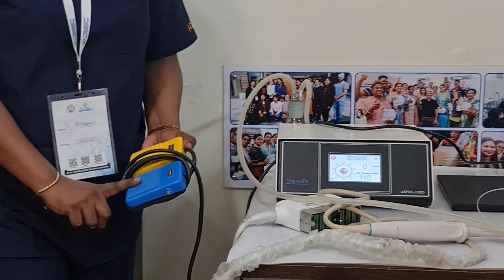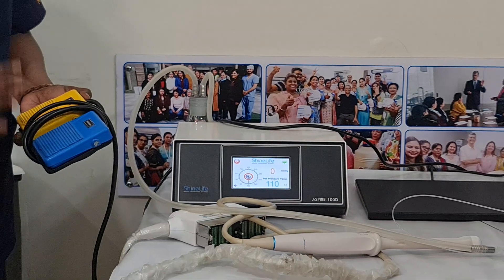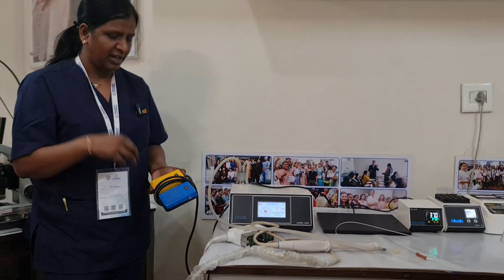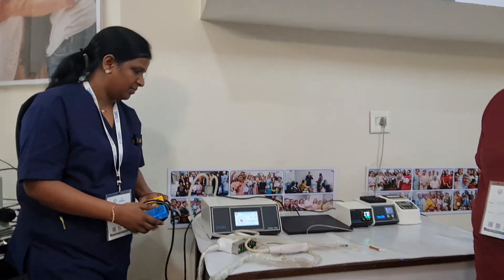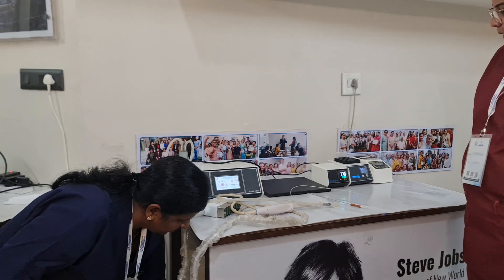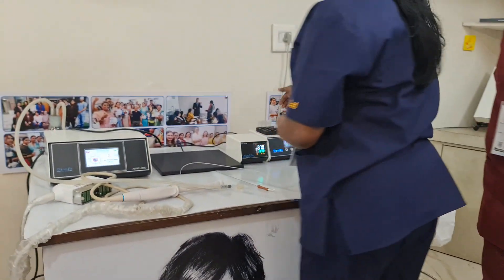In the pedal there are two pedals. The one we normally use: when we press it, it goes from zero to minus 110. The other is the boost pedal — if anything gets stuck, like blood or mucus, we boost it and it will go up to around 400 millimeters of mercury.